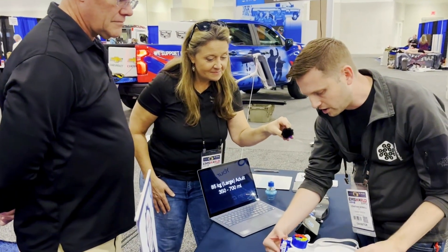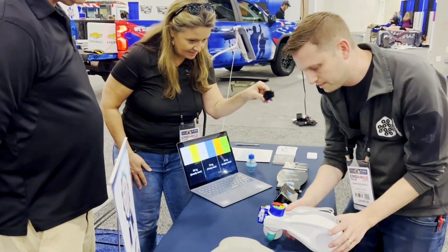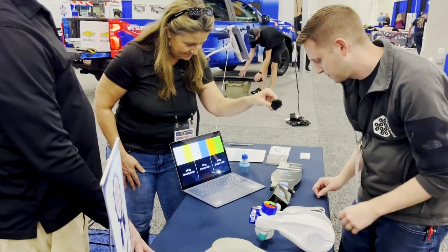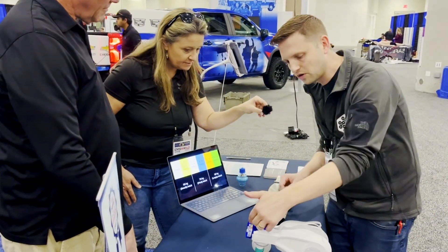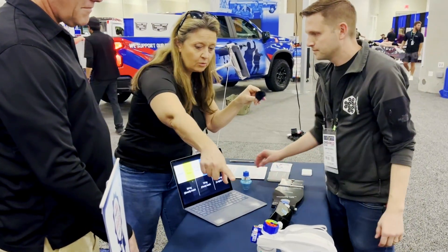If you're peds-focused and want to go down for a nine-year-old, you set your PIP back at 40 and you get 231 milliliters — right in the range for that child. And this goes all the way down to an infant size as well.